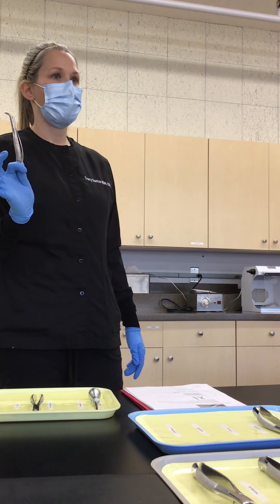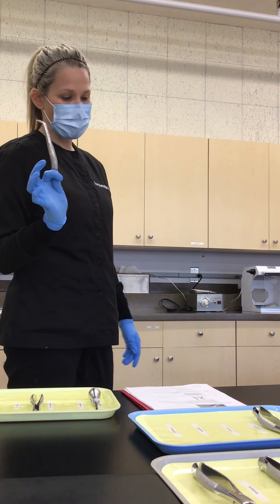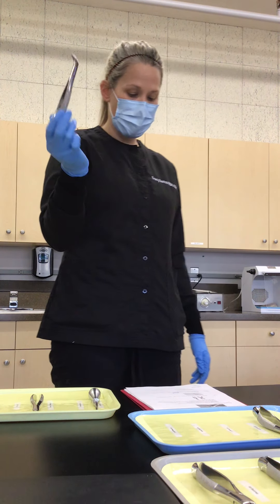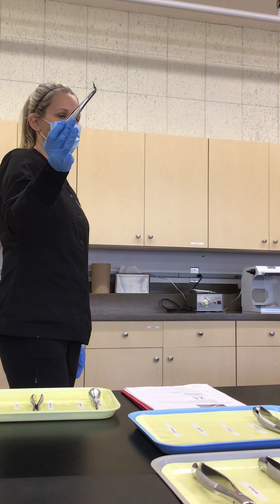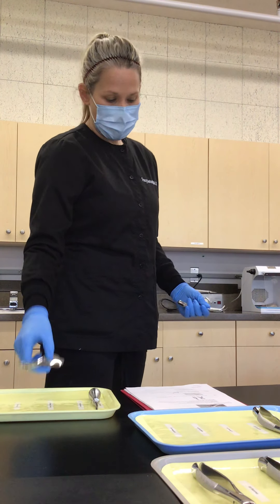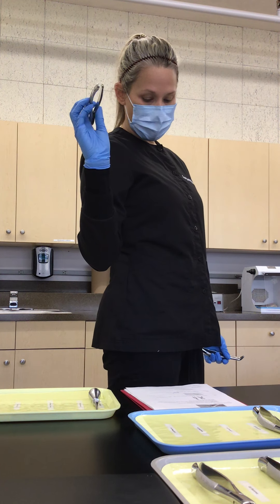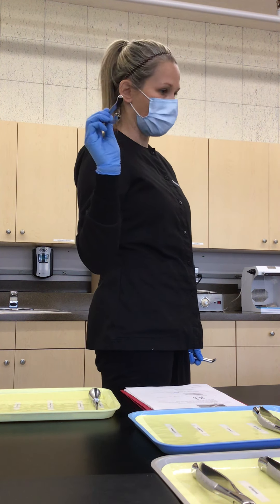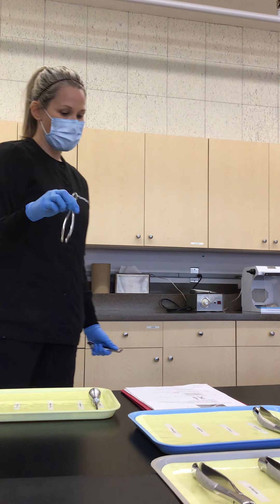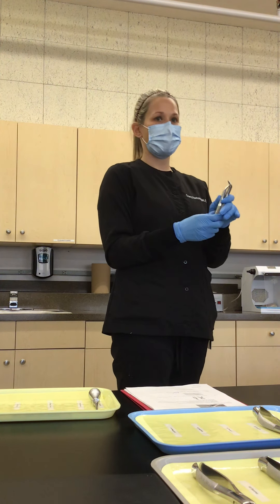The 101 is universal for mandibular and maxillary — yes, all deciduous teeth. The 150S is all maxillary universal, same as the permanent use. The 151S is the mandibular forceps, deciduous mandibular universal — there's a typo on the handout, so make sure you cross that out. Same as the permanent; they're just little mini versions of it.